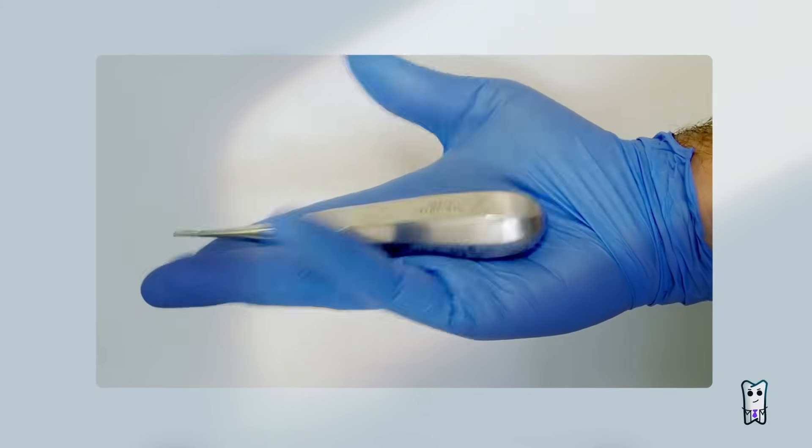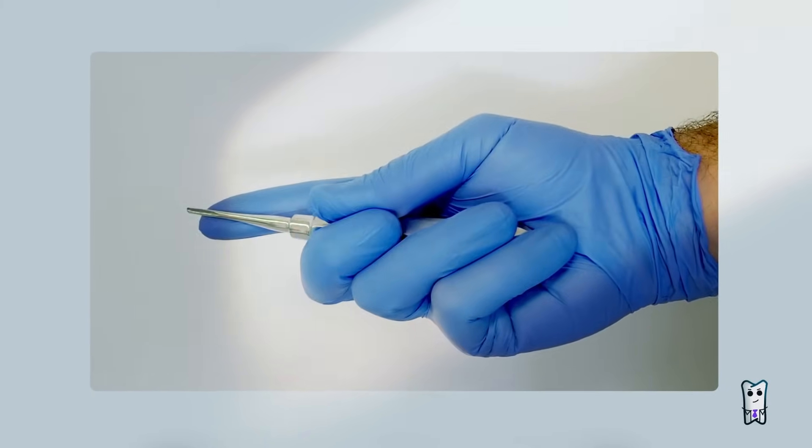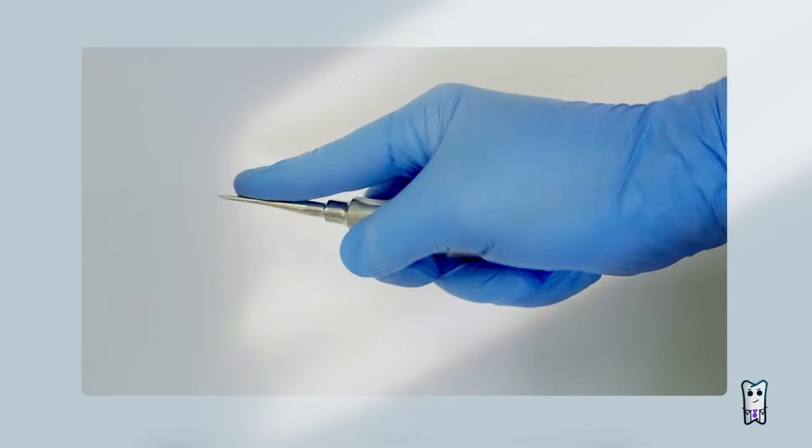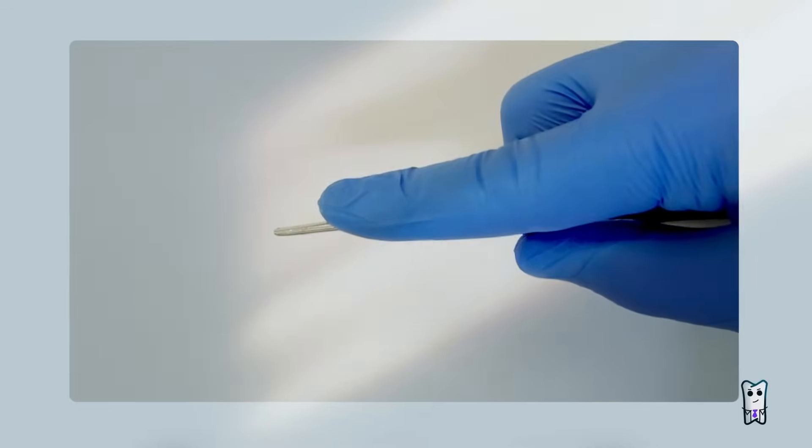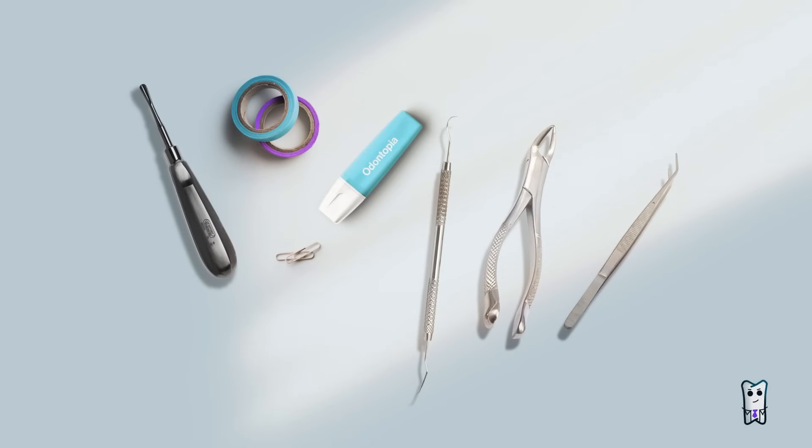The handle should rest in your palm. Through it, force can be applied when needed. The tip of your index finger should be as close as possible to the blade. The closer it is, better control you will have.